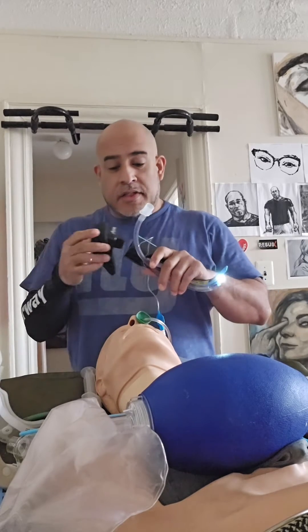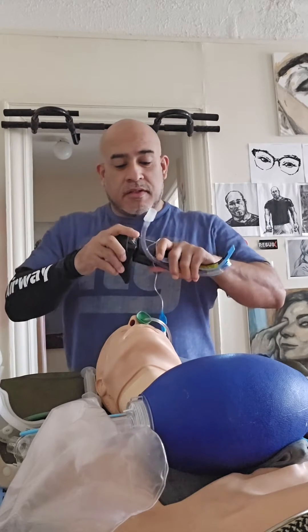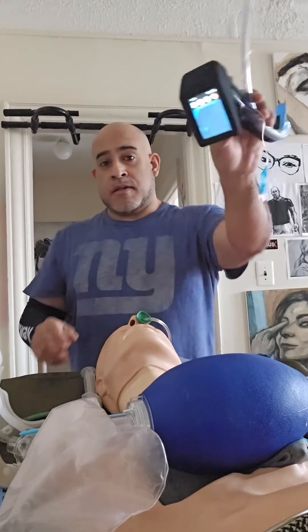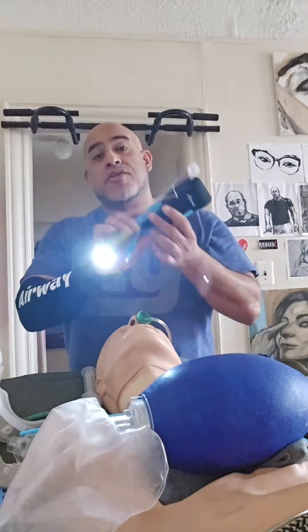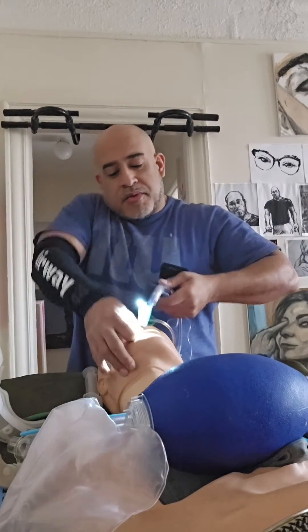This adaptation includes something like a monitor, which makes it a little heavier, but you can still do the same stuff — like intubate with it.